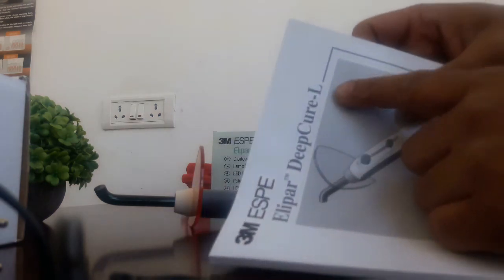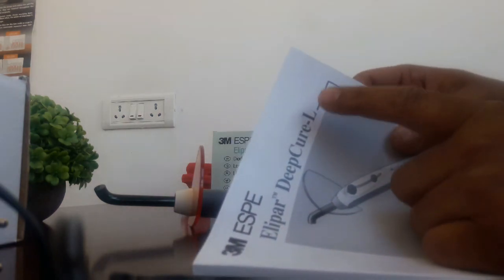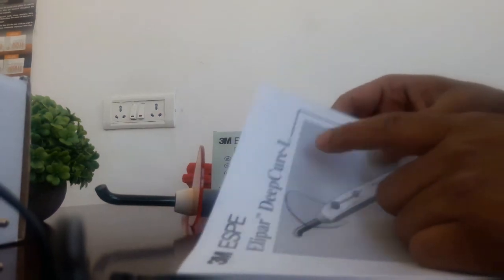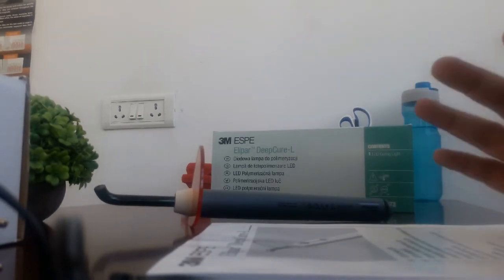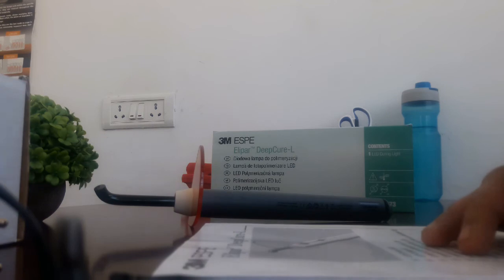This is the L model. You're also getting the S model nowadays. Both products are technically similar as claimed by the 3M company.